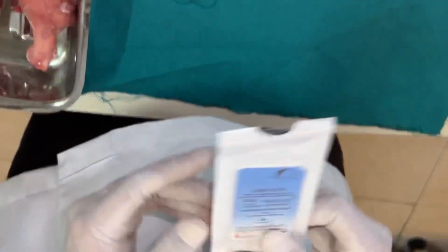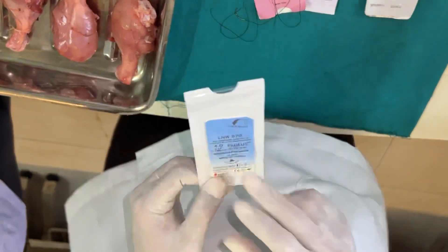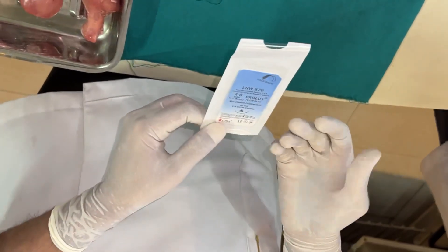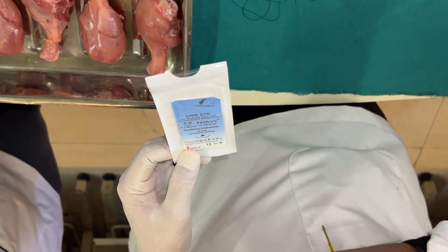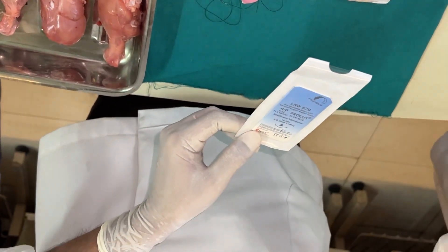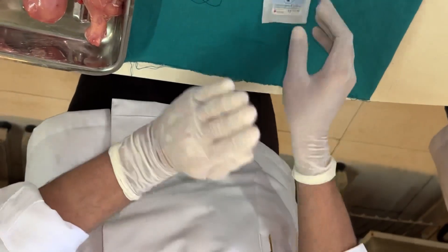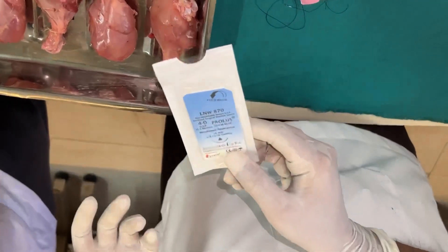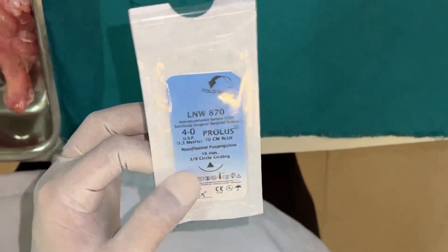Prolene is a synthetic non-resorbable suture material with good strength and monofilament structure. However, it has two disadvantages: it is expensive compared to silk, and it is very rigid and sharp. In the oral cavity, it tends to tear through tissues, and the cut ends remain sharp enough to cause ulcers. A workaround is to heat the knot ends with a ball burnisher to curl them, but it is generally not recommended for dental use.